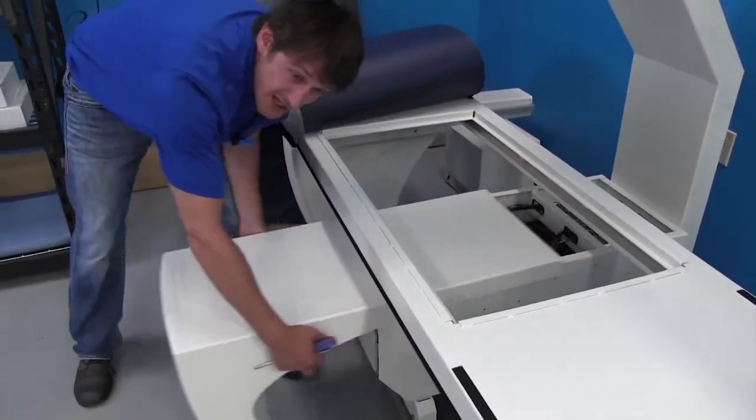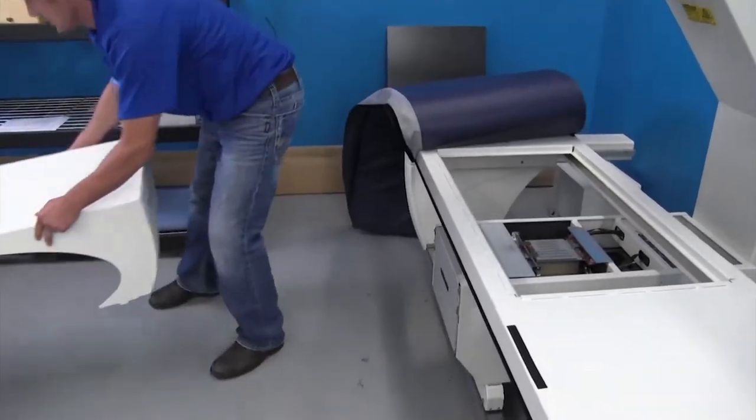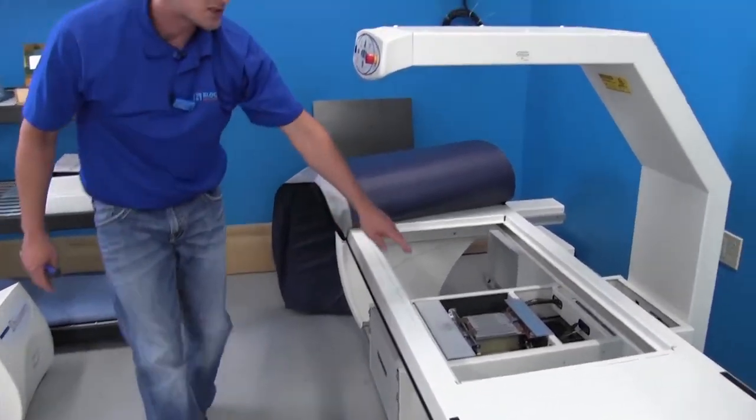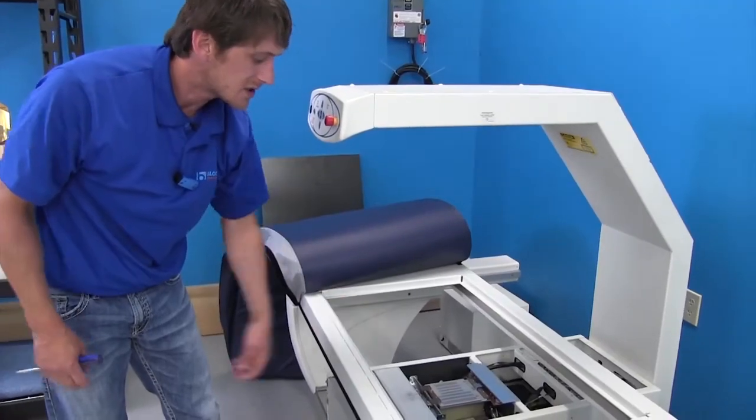Pulling the tank cover off, setting that aside. This gives you full access to the tank itself.